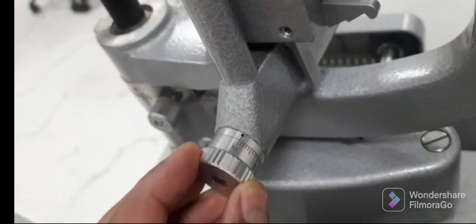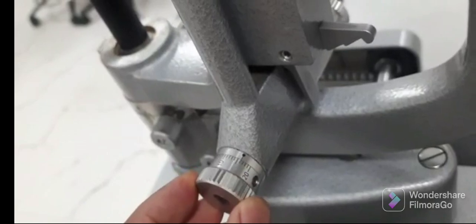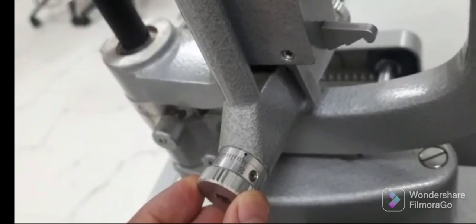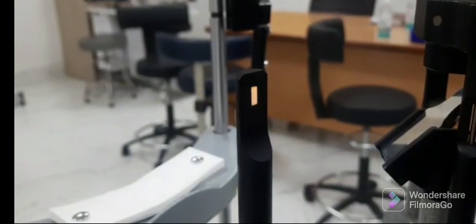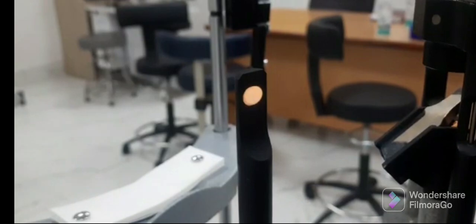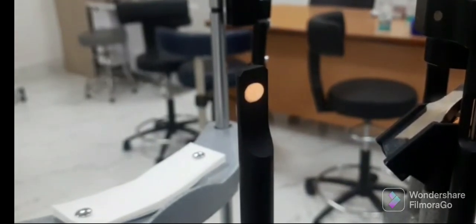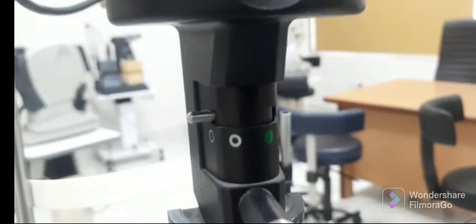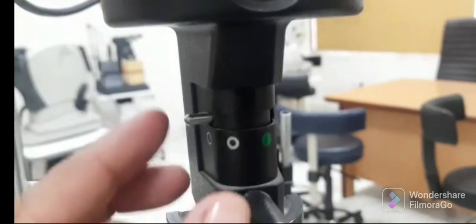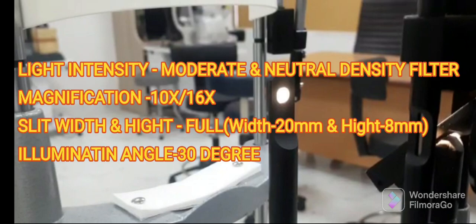By rotating this knob, the width of the slit beam should be adjusted to its maximum level, that is 20 millimeters. As you can see, the width gets slowly increased by rotating the knob. Now the most important thing is to adjust the filter used for diffuse illumination — it should be placed on the neutral density filter. This is the final adjustment for the slit lamp setup.